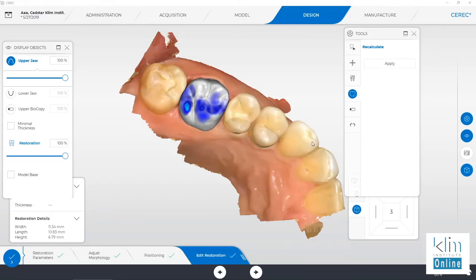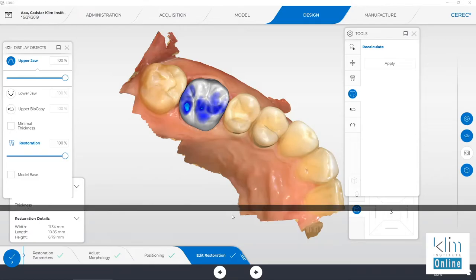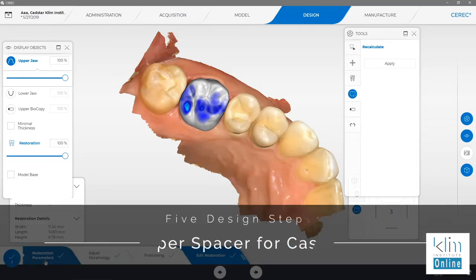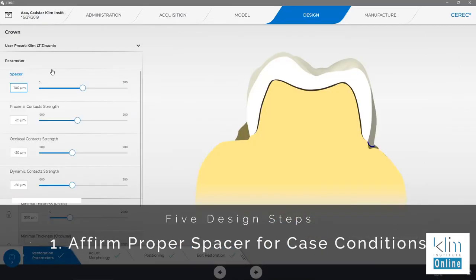When a restoration is proposed, the first thing I like to look at is parameters. We want to check the spacer. In this case, 100 is my default. If the preparation is rough, even though you've done the best you can, we're going to go up to about 130.